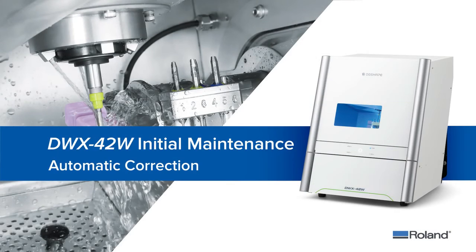Automatic corrections should be performed during the initial setup of your DWX mill. Be sure to read the user manual to understand more about scheduling automatic corrections for your mill.